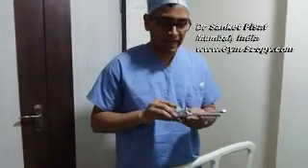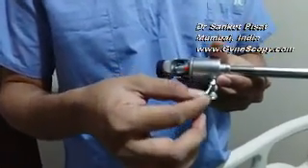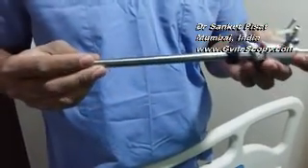Lastly, all trocars, hysteroscopy sheaths and any other devices having an inlet and an outlet mechanism, make sure that the inlet and outlet mechanism is working properly and that it is moving freely so as to allow the flow of gas or air or liquid, as the case may be, during surgery.